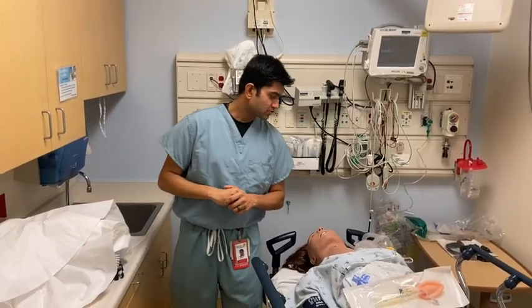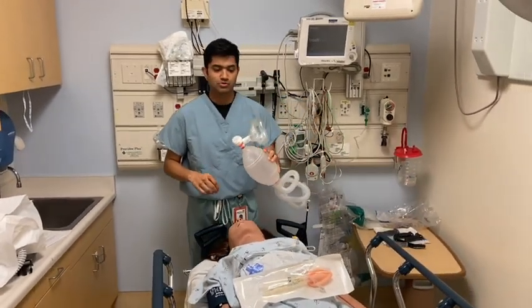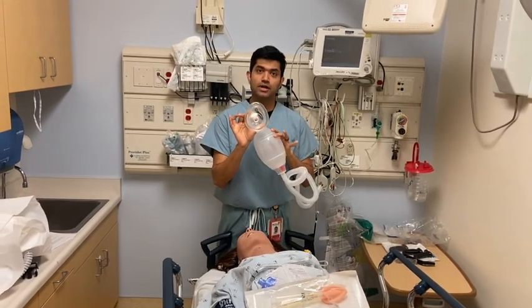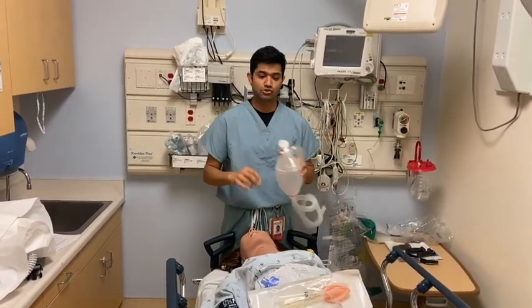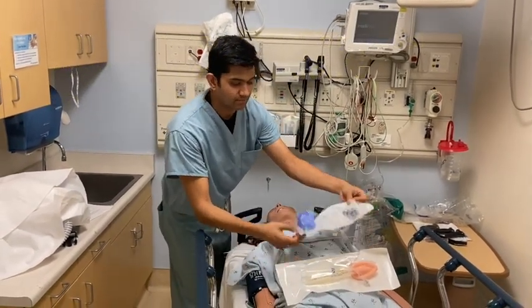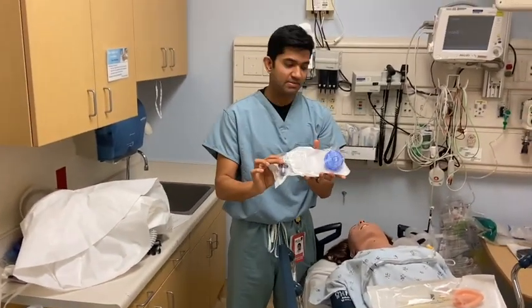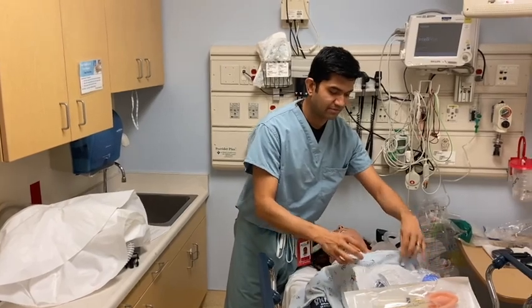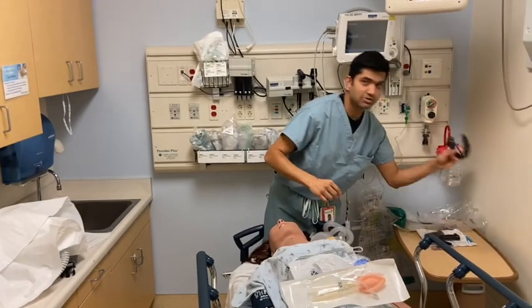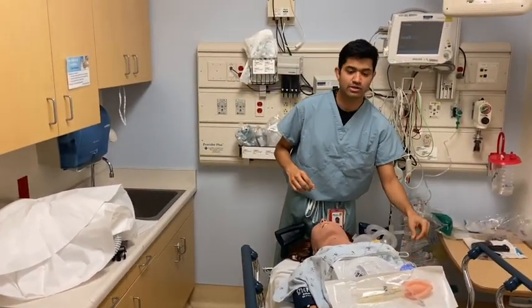So typically in some of these rooms, we have bag valve masks or ambubags, and most of the time we're used to seeing them connected like this. In this case, we actually don't want to use an ambubag in these patients because of the aerosol generation. And so in some of the rooms, we will actually have the viral microfilter as well as the PEEP valves. We'll also have the usual stylet in the bag, but we'll be using some sort of video laryngoscopy. I've not connected the machine just for ease of demonstration at this time.